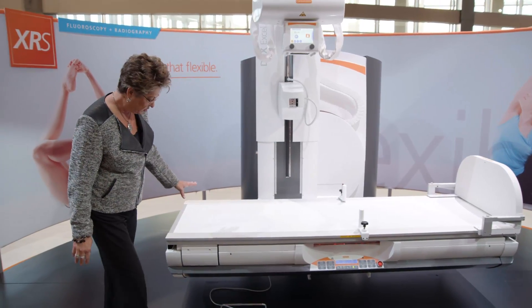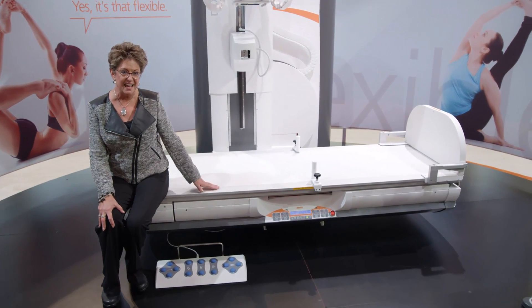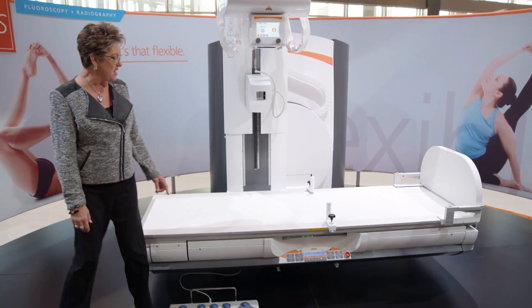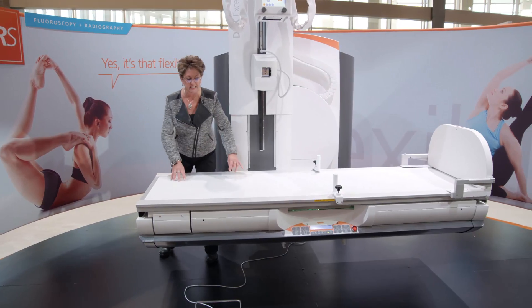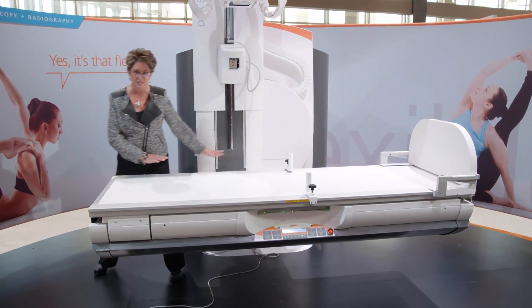You'll notice how low the table is to the floor — very easy for a child or an adult to access. If you require lifting assistance, the benefit of having the background open here means I can actually get lifting assistance from both sides. A lot of clearance back here.